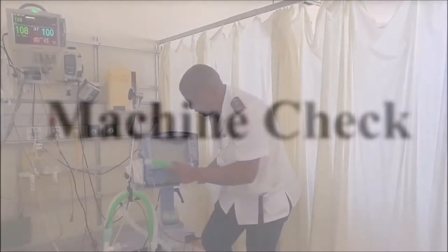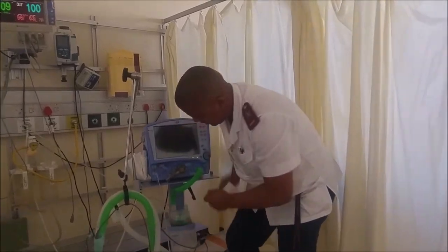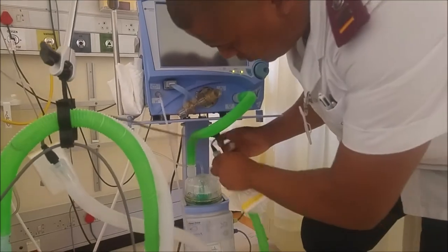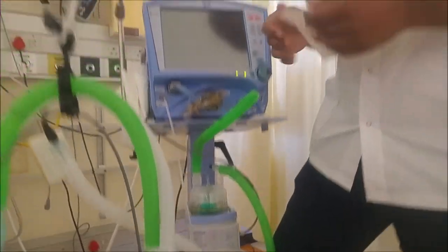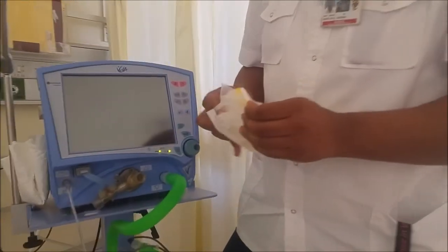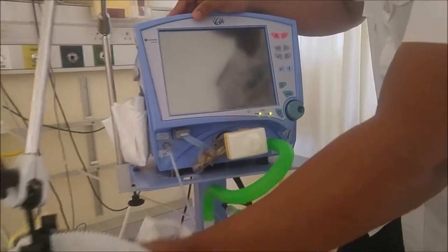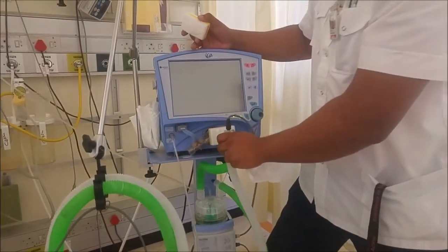A machine check is necessary before connecting a patient to a ventilator. Make sure all piping is correctly connected. The filter of the ventilator needs to be changed daily. Ensure the humidifier is filled with sterile water. If anything is missing during the machine check, an alarm will sound once the ventilator is switched on.